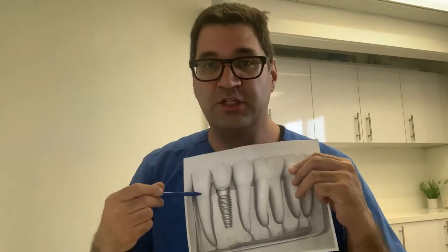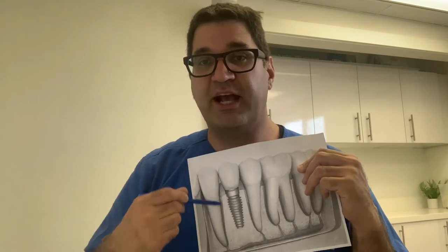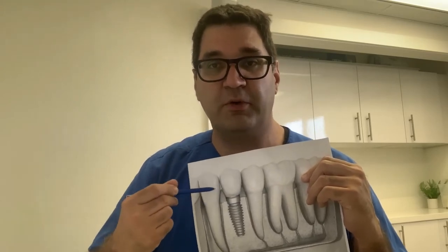So what is a dental implant? Simply put, a dental implant is a replacement to your tooth that's 100% fake. Let me illustrate this on my models and photos. This is what a natural tooth looks like. An implant has a post that replaces the root, an abutment that creates an intermediate, and a crown that replaces the upper — the coronal — portion of the tooth. When you're talking about a dental implant, the tooth is 100% fake.